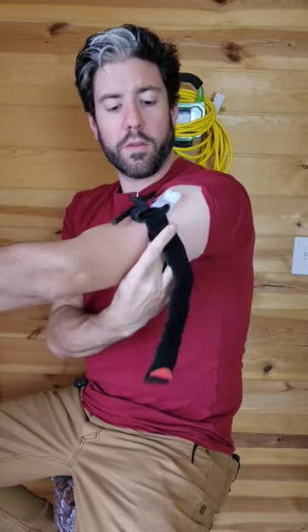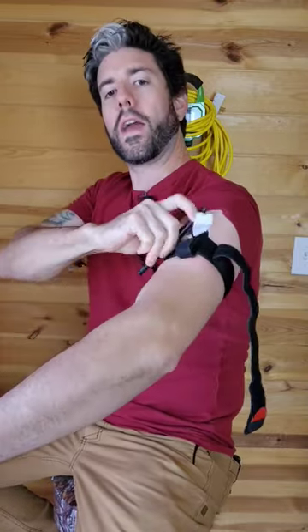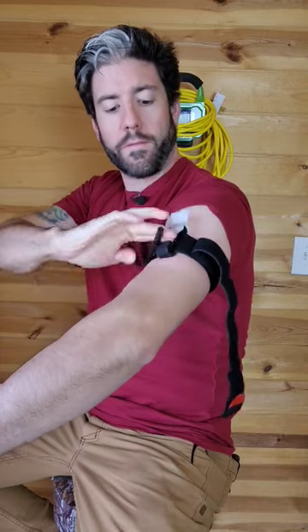Now this one has not been tampered with or modified in any way. All I did was stage it so it could be used for immediate use. We're going to go ahead and tighten it down and see if there's any failure point here.